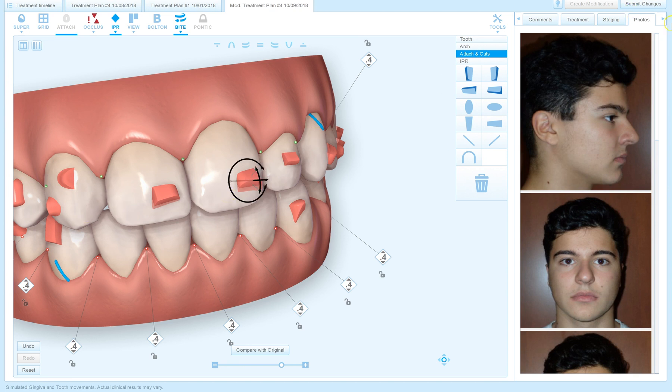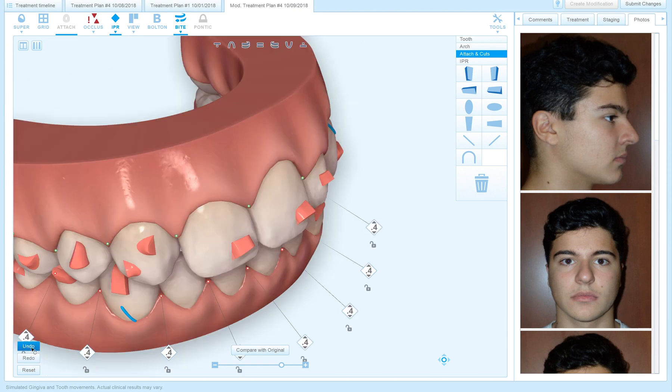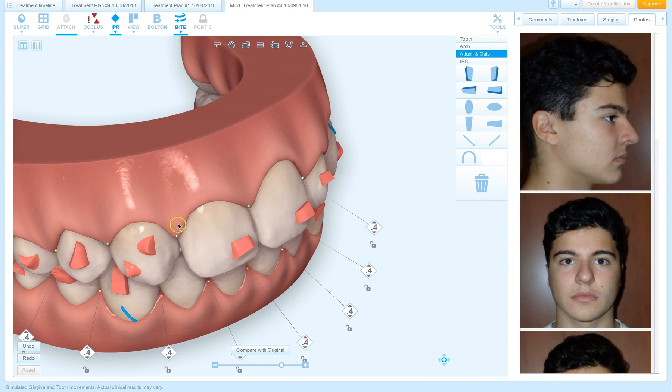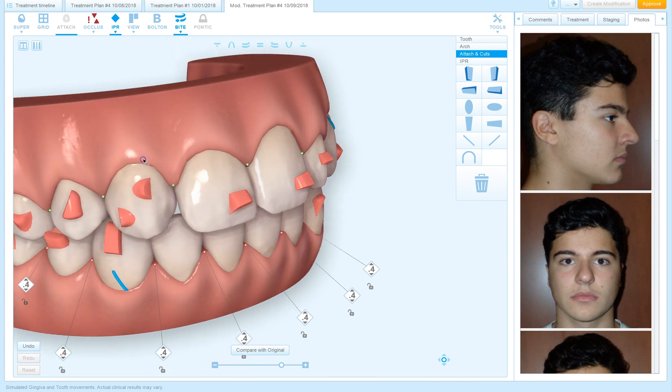So I've changed it and now that changes the shape of aligners, so I have to submit this change. If I undo that change that I made, then I'm gonna get back to the ability to approve it, which I'm not going to approve it yet because I still want to make those changes.